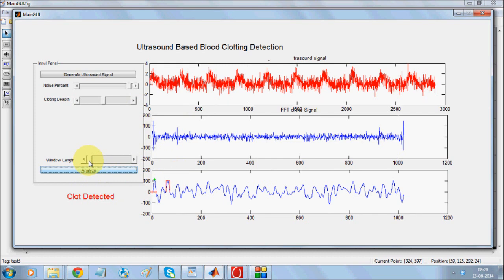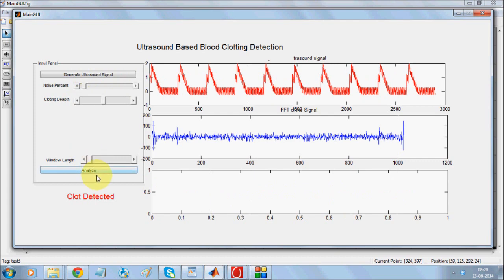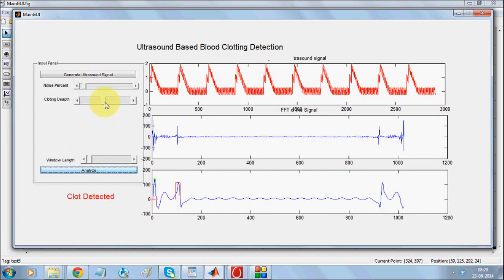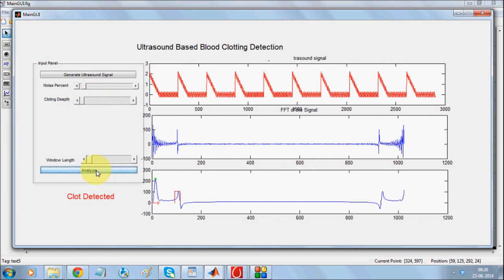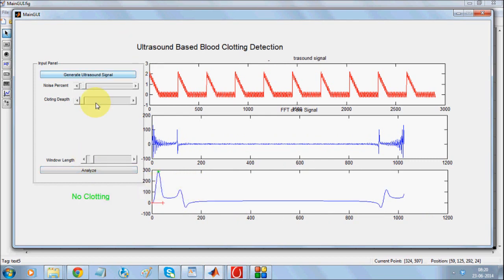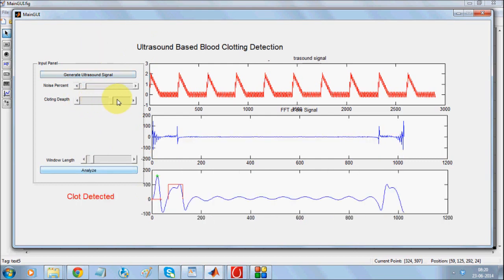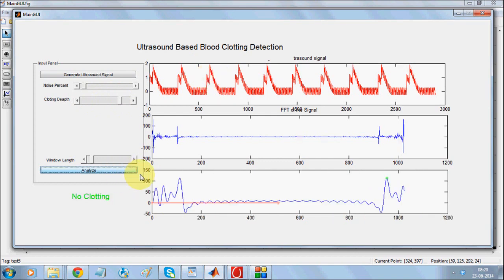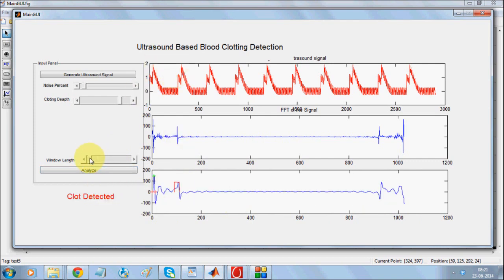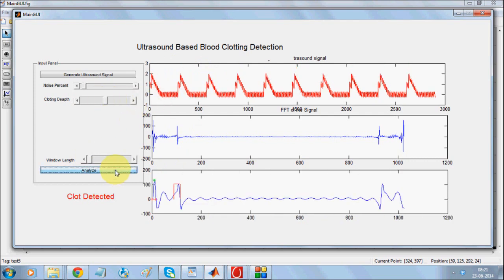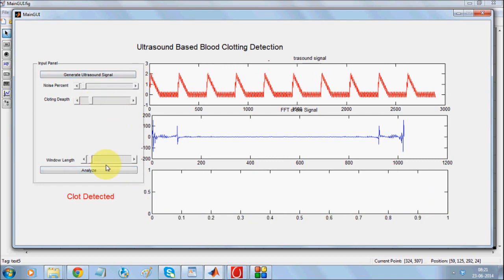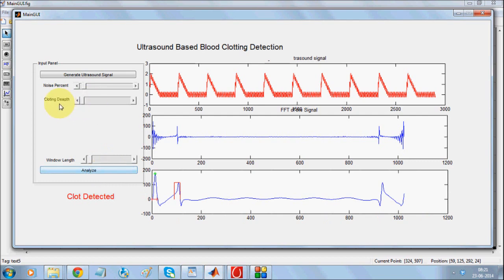When you adjust the window to pretty close, even when there is no noise, and if you make the clotting depth zero, when you analyze, this is a misdetection. So it always makes sense to keep it in the appropriate range. Whenever the clotting depth increases, it becomes quite clearly visible. You can adjust your range — when the signal is in the visible range and when it goes out of the visible range — and if you analyze, it still detects the clot. When you make it zero, it's still detected correctly.